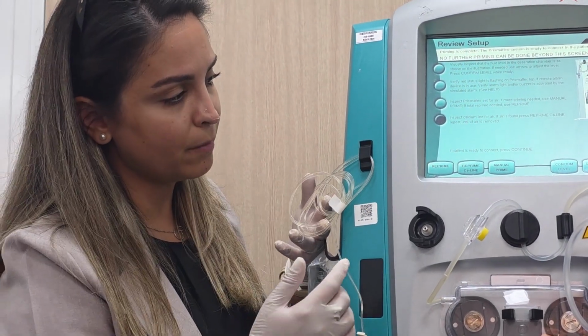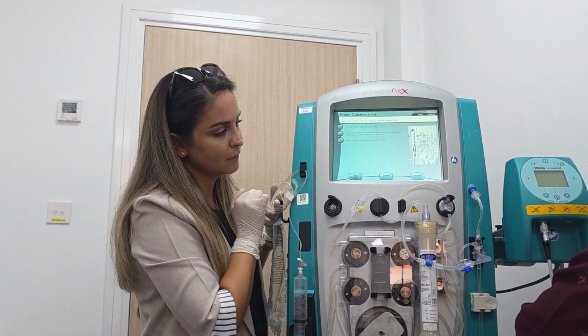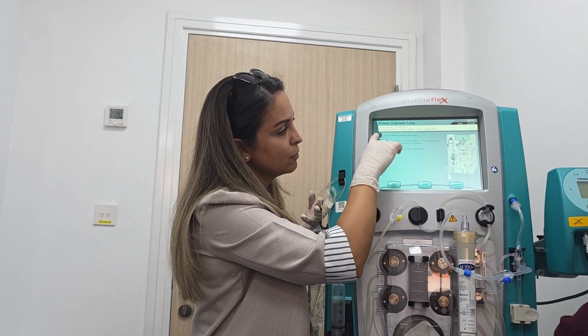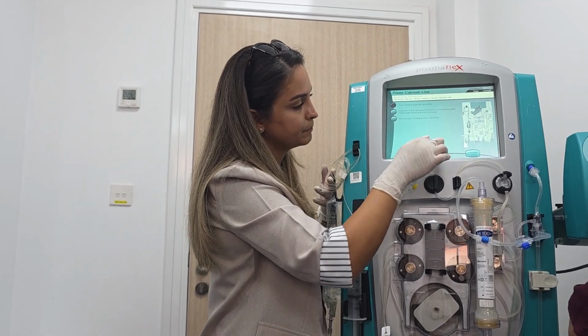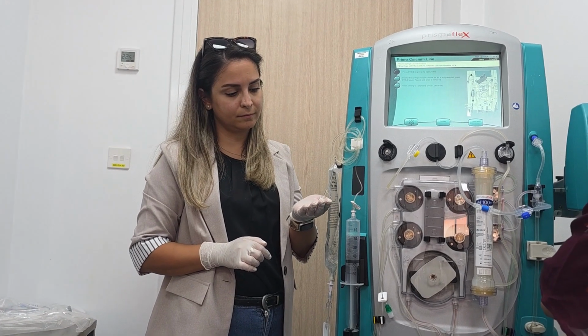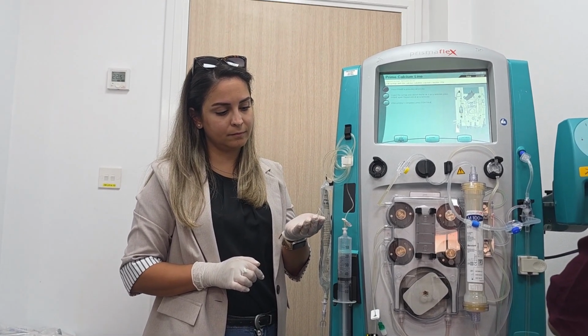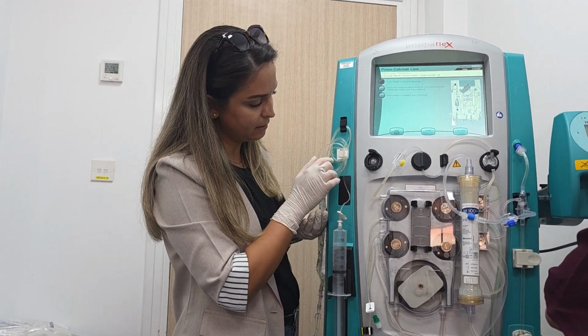So let's do reprime. No worries. So reprime calcium line. See what it's telling you? Press prime to prime the calcium line. Okay, no more air bubbles in the line itself.